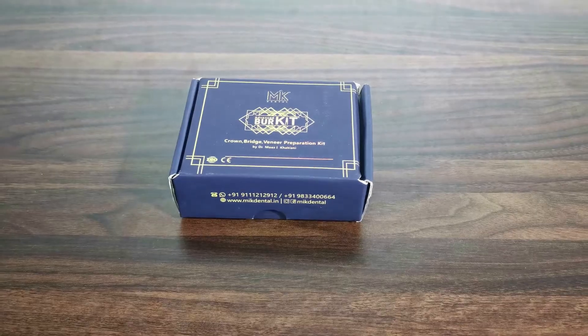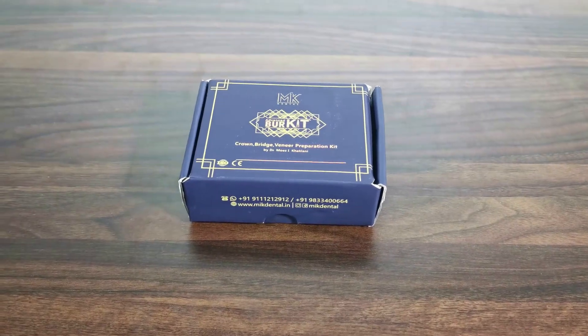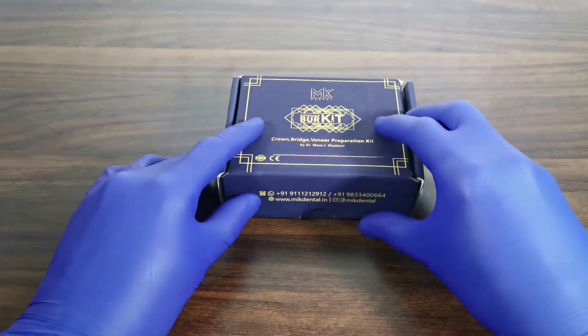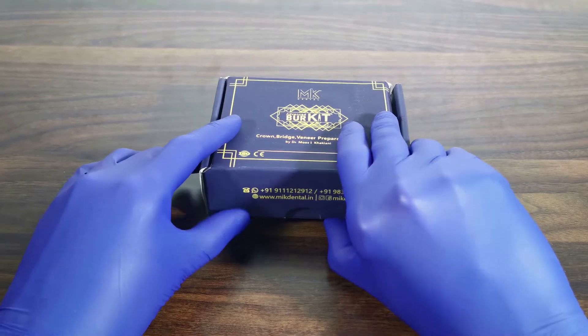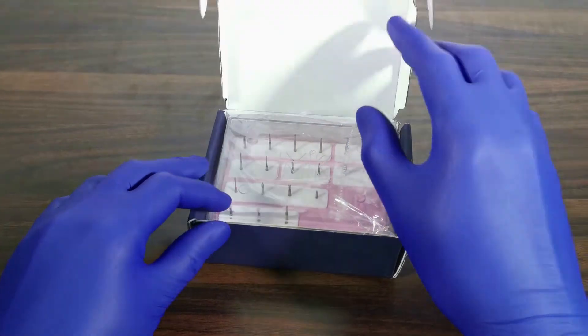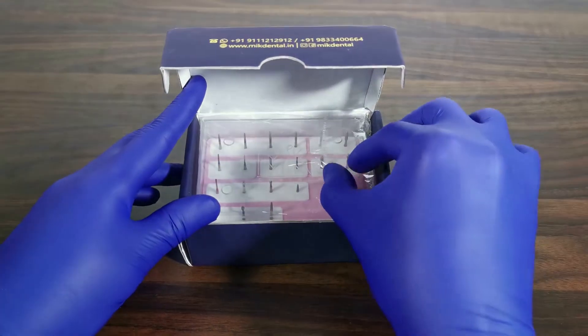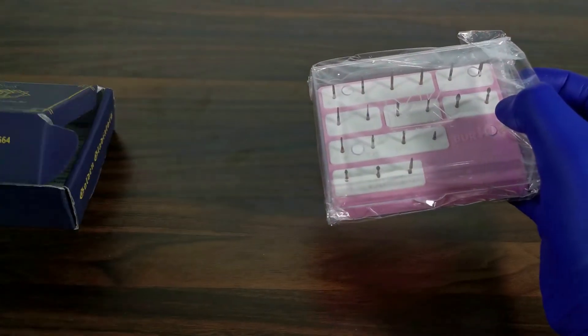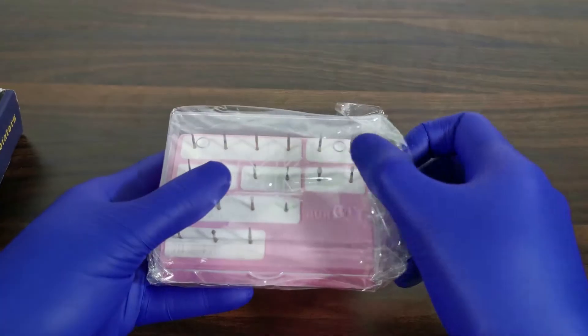This burr kit is designed by Dr. Moise Kakiani. The most important aspect of a burr is its tip. Knowing the shape and dimensions of the burr, especially at its working tip, is of prime importance in order to ensure the desired margin architecture and the desired amount of tooth reduction can be achieved on a predictable basis.